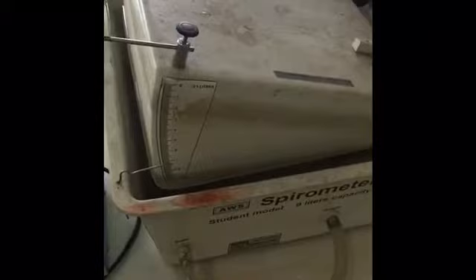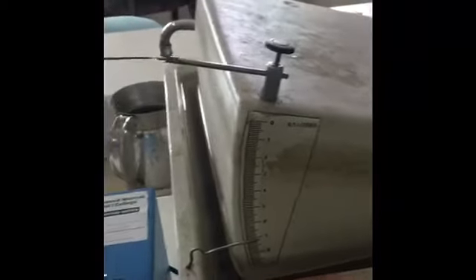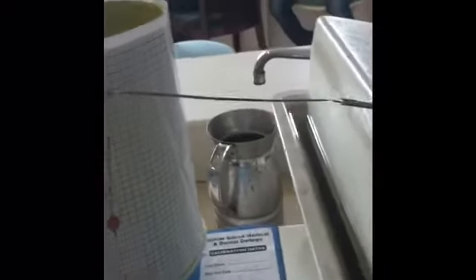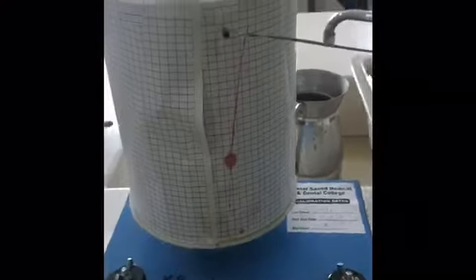There is another chamber that is present inverted over this drum. This inverted chamber is submerged into the water that is present within the spirometer. We have nine liters of water — that's why it is called a wet spirometer. On the left side you can see a scale, and the range of this scale is from zero to nine liters. Along with this scale, we have a pointer, and the pointer contains red color ink.